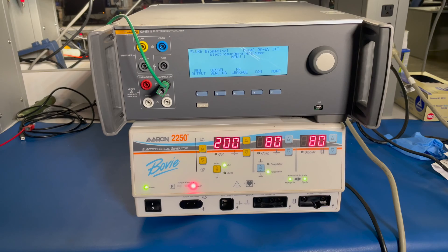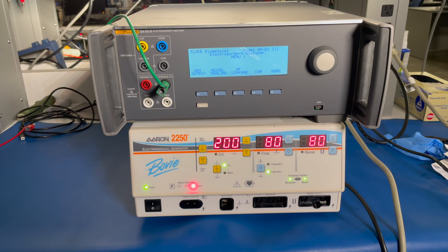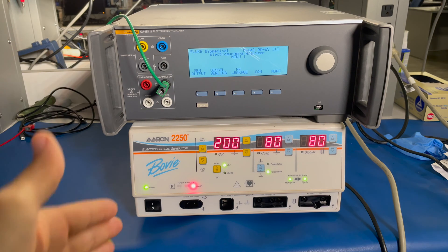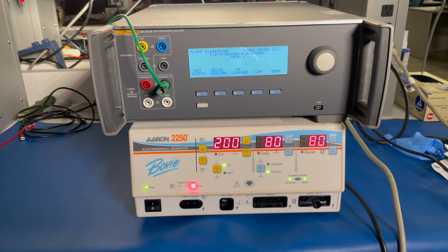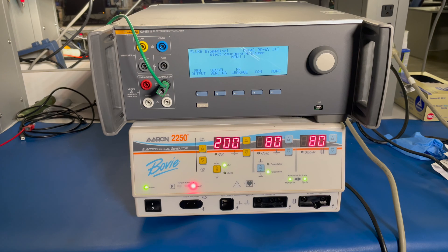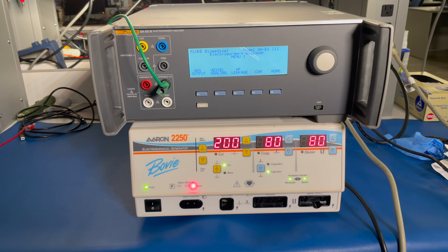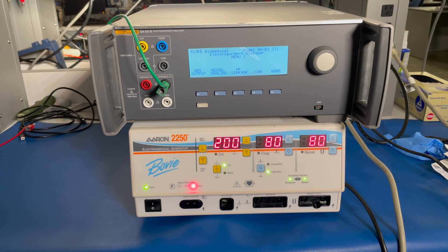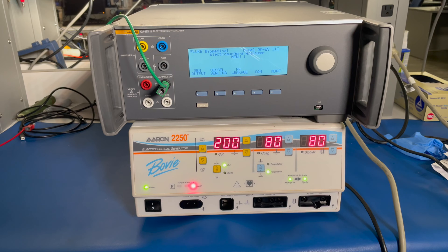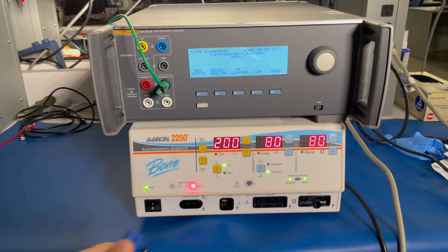When you're doing high frequency leakage, you have to test the return electrode, monopolar mode, bipolar mode, and any other modes you might have on your generator. Different brands have different modes that you might see, and you have to test all of those.